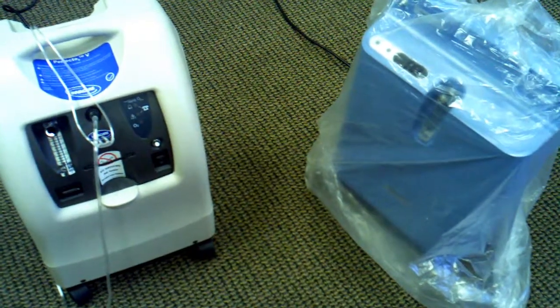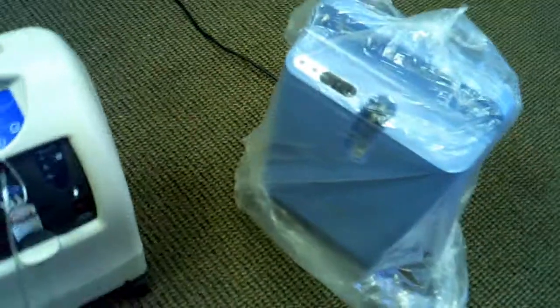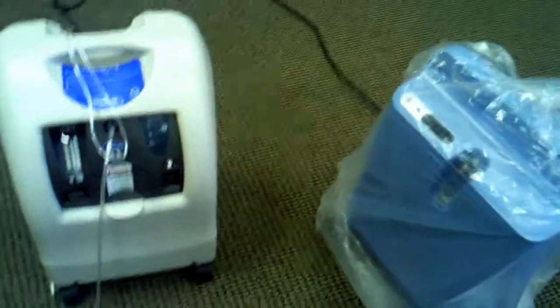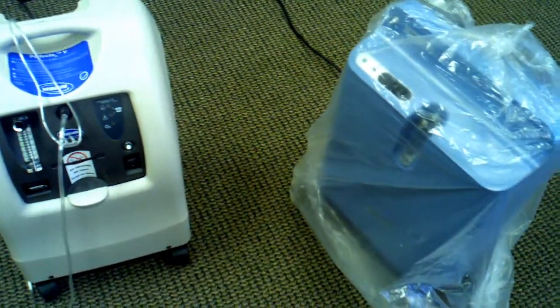You have about a 99.59% chance, based on the factual numbers of how many of these are actually repaired and fixed over the course of the hundreds of thousands that are around the country, of getting 20,000 hours out of these units without anything happening.